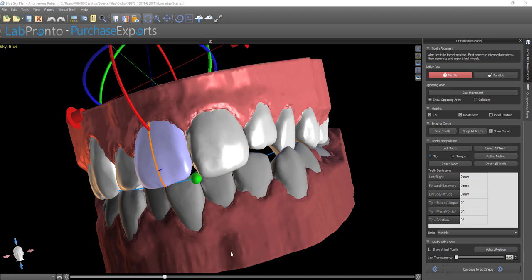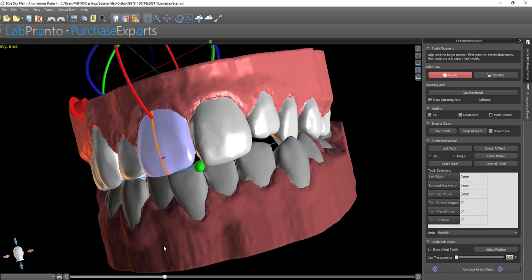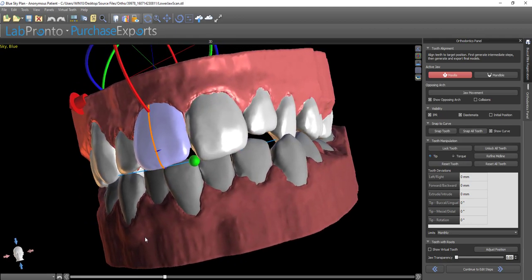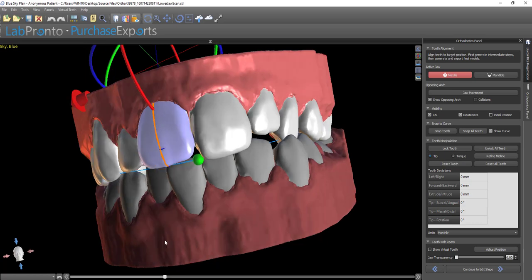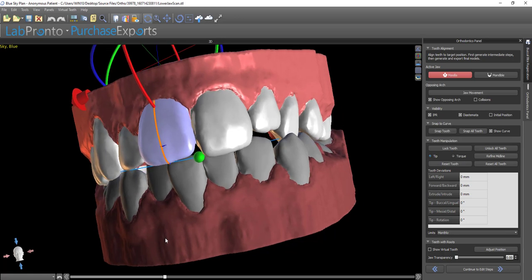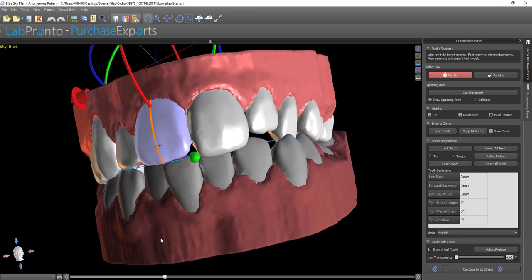Another widely accepted process of adding brackets is based on the patient's current tooth position without creating a virtual tooth setup, and aligning the brackets to be flush and centered on the tooth. To do this, we go through the same software process: load the models, segment the teeth, and trim the models until we reach the stage where we're able to reposition the teeth. In this protocol, we're not going to create the virtual tooth setup or move the teeth at all — we'll just click Continue to Edit Steps without changing the tooth positioning.